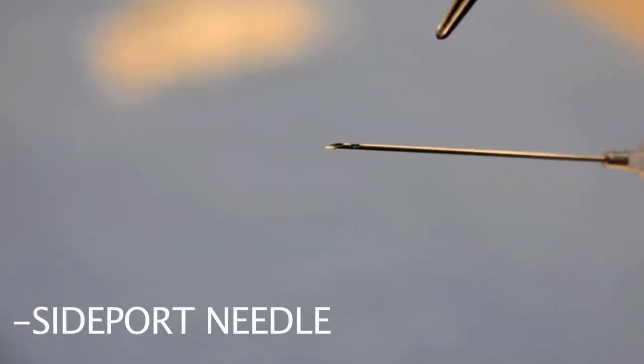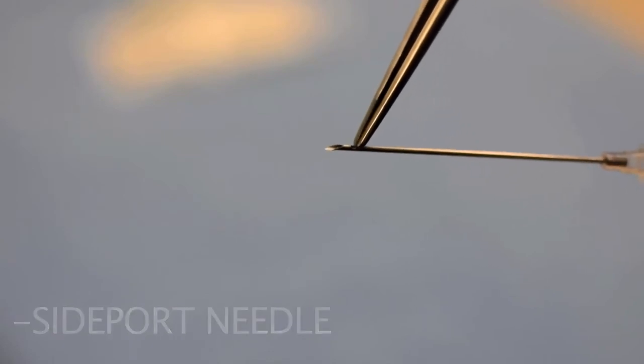Verify that your needle is a side port needle. Here is the end port, and here is the side port.